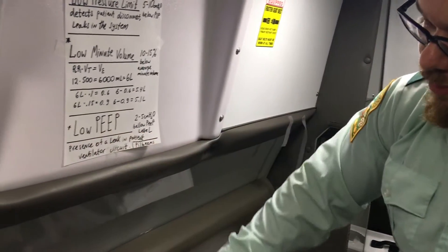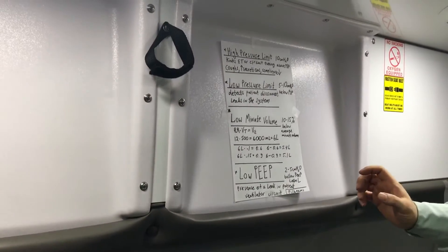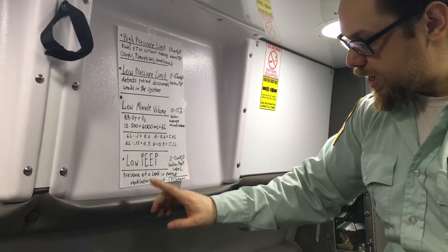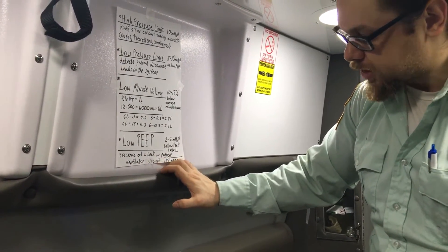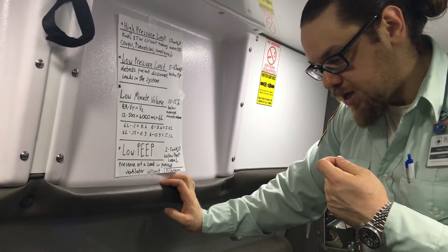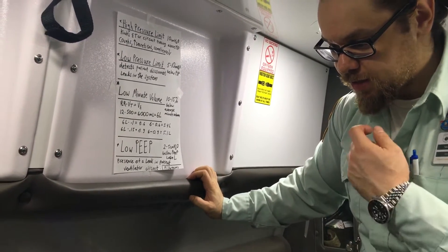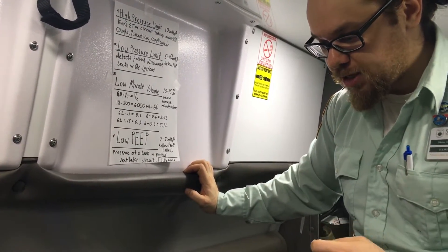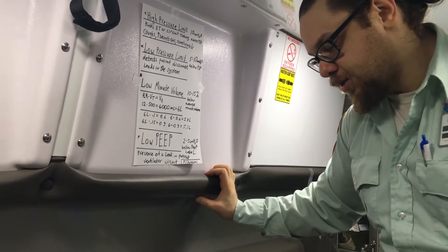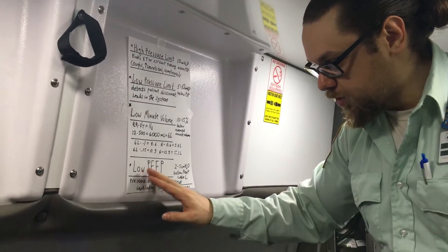I also want to talk to you about low PEEP — sometimes you may see it. We cannot really adjust it from the main controls here; you have to go to extended features. Low PEEP is usually set two to five centimeters of water pressure below the set PEEP level. When you see a low PEEP alarm, it indicates the presence of a leak — there's a circuit leak. At times you will see this if the patient is intubated and their endotracheal tube cuff does not have sufficient pressure — when they intubated him, they didn't inflate it fully. You can correct this by giving a little more air to the cuff to close that space. But do not force a full 10 CCs, because cuff pressure has to be set with a manometer so you're not occluding the vessels where the endotracheal tube sits. If you do see it, just give it a few mLs of air and see if it fixes the problem.